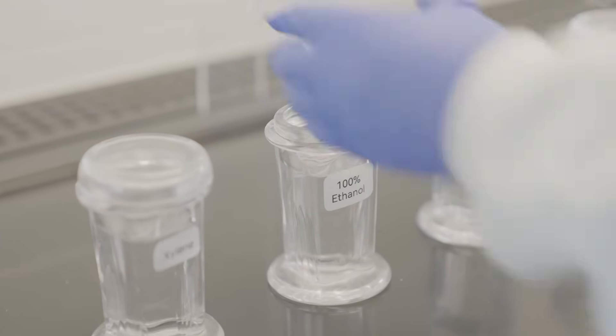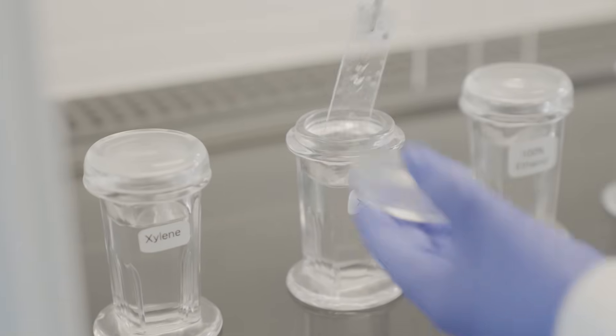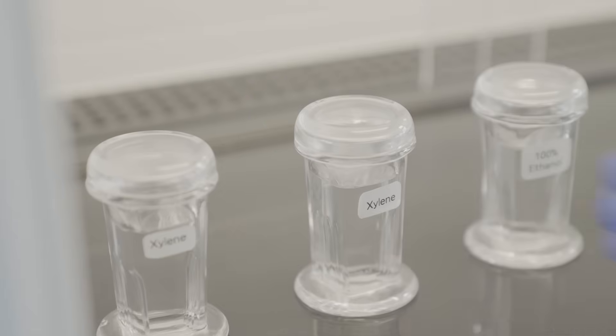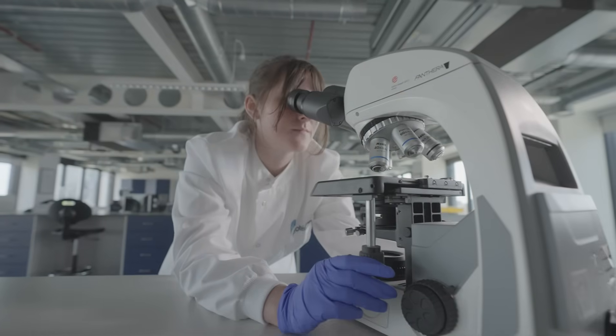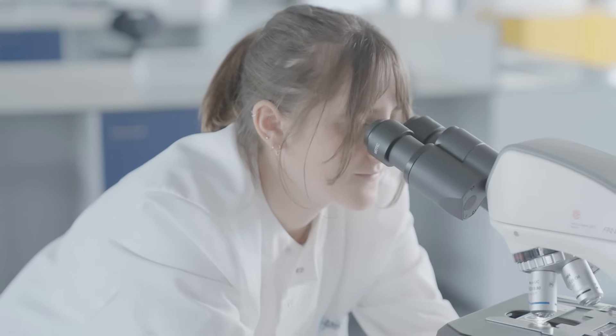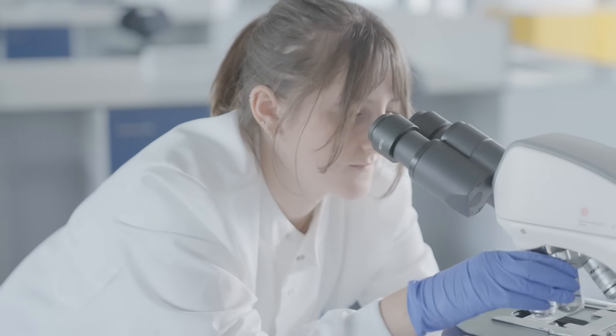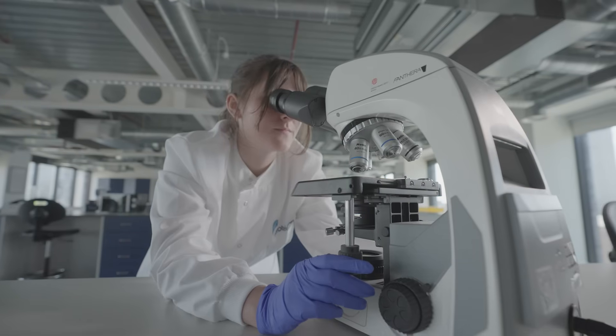Finally, immerse slides in xylene for 5 minutes. Repeat this step in fresh xylene for 5 minutes. Mount the sections with sufficient mounting media and cover with a coverslip, ensuring there are no air bubbles. Air dry in a well-ventilated area, such as a fume hood, before viewing the slides on a microscope.